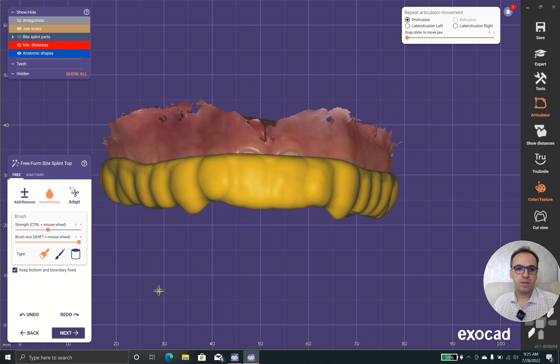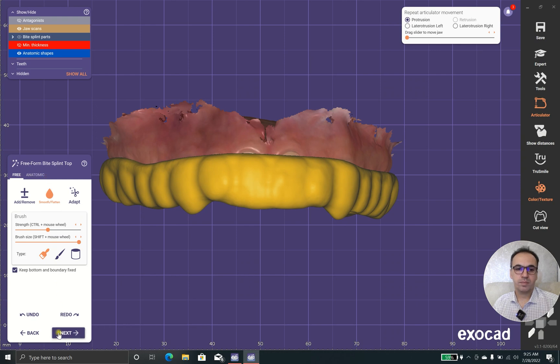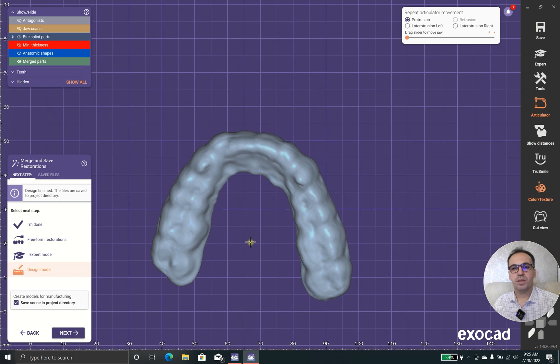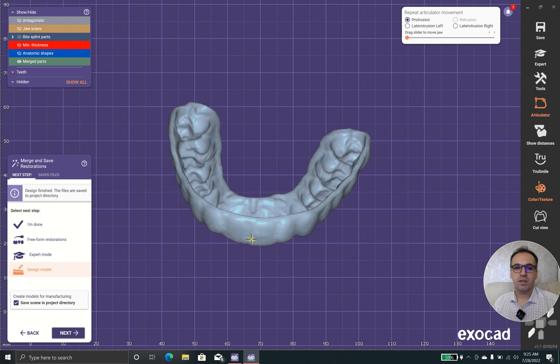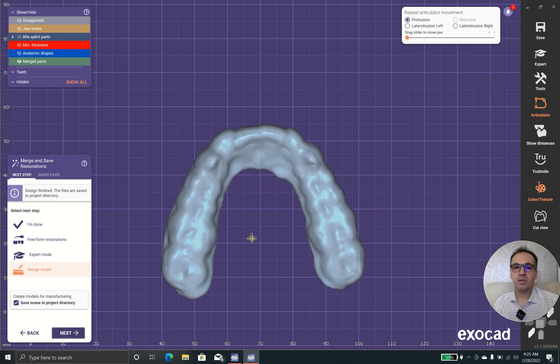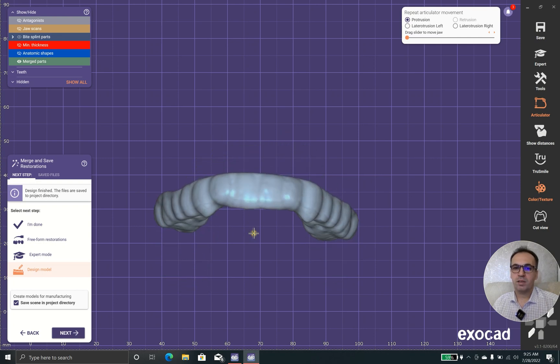In case that you design your bite splint properly, you don't need to alter it in the mouth. Thank you everybody — today we designed beautiful bite splints that help lots of patients to have a better life. You learned how to design a bite splint, how to control the diameters, how to control the angles, and how to add a canine ramp.